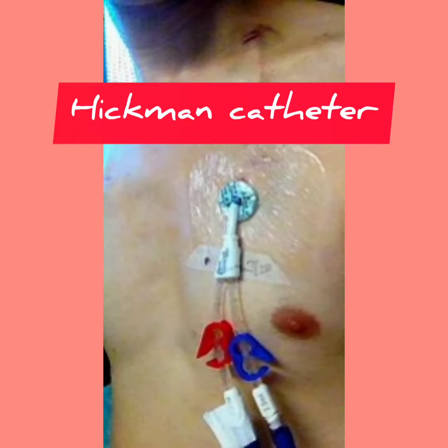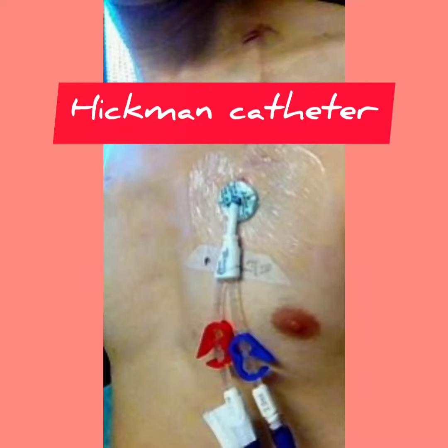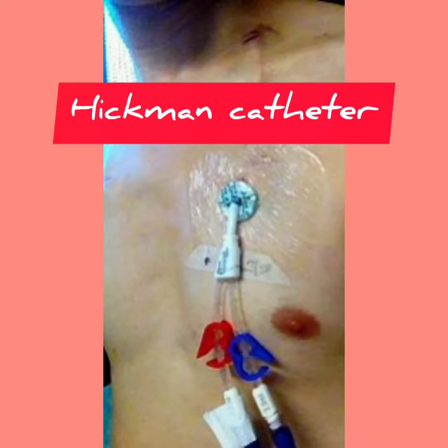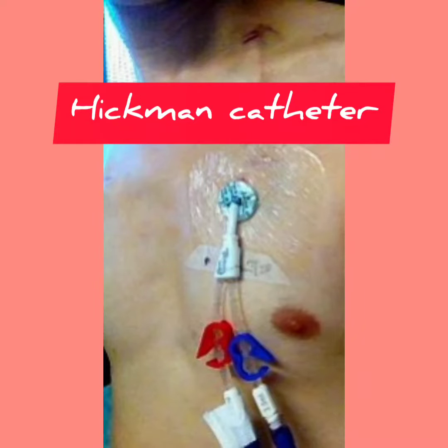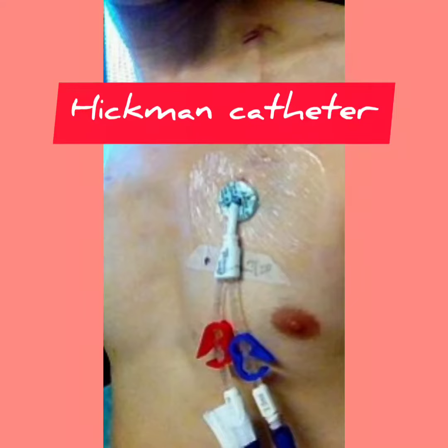Hickman line is a central venous catheter, mostly used for the administration of chemotherapy or other medication.